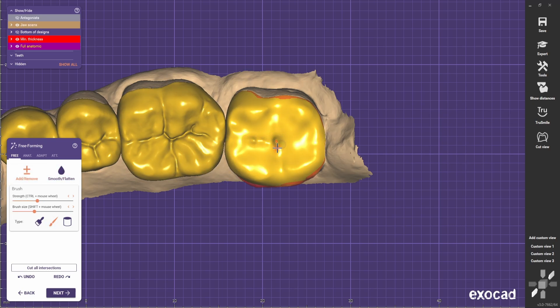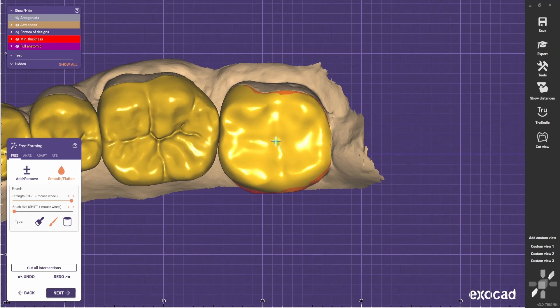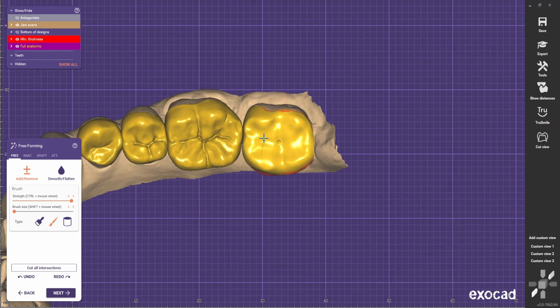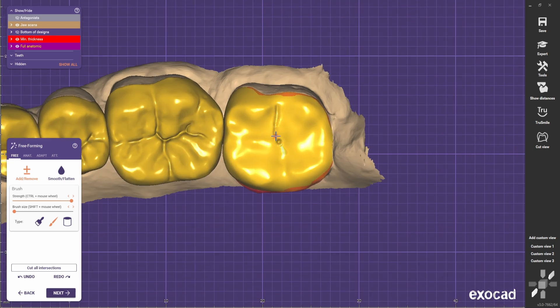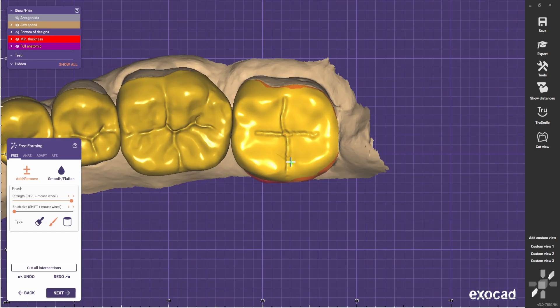After finding the middle of the tooth, go full strength with brush size to a minimum, then find the middle of the tooth. Always try to find also where the main groove is going through. This is the middle — now I'll do the buccal division, then I'll do the palatal division, and then I'll go through the middle of the tooth. The second molar usually behaves more like a cross. Now you smooth it a bit — you never want to be too exaggerated.